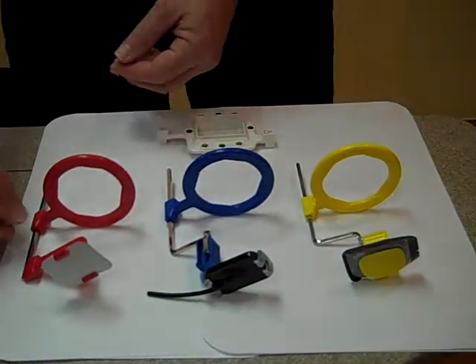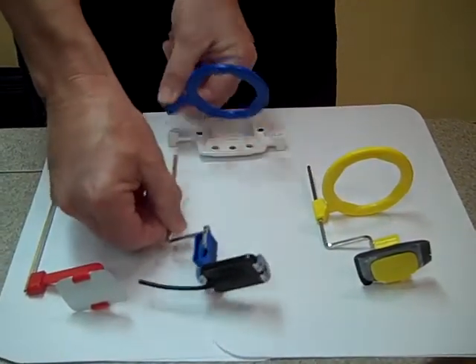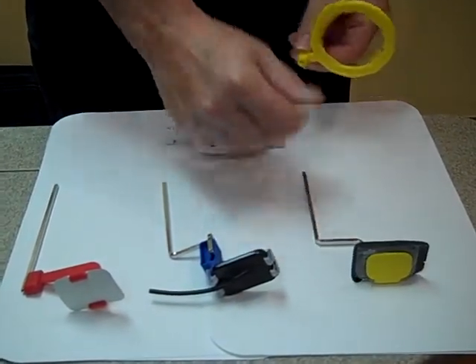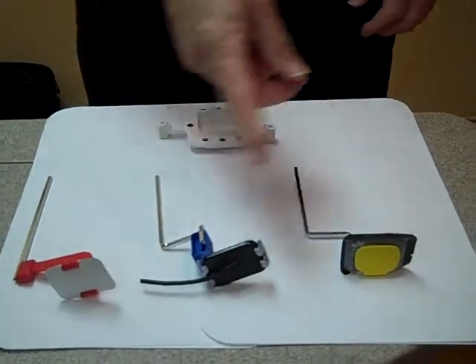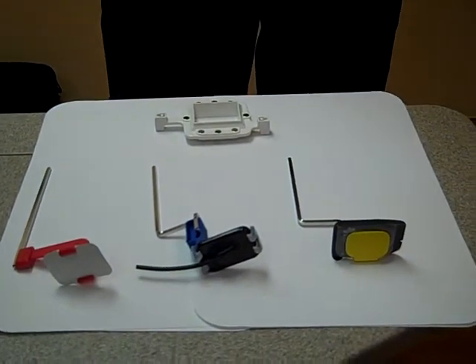What we're going to do is remove the round rings from all of your positioning setups. Everything else stays the same. For whatever receptor you're using, you set it up exactly the same way — you just remove the ring.